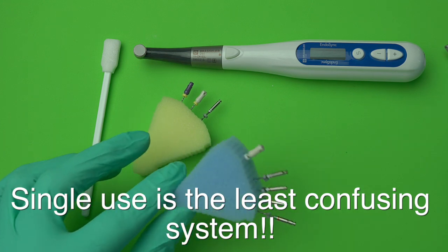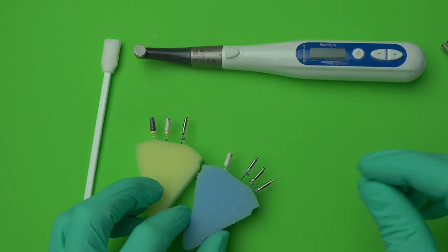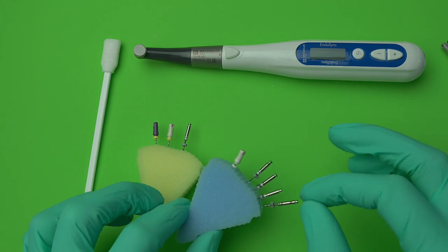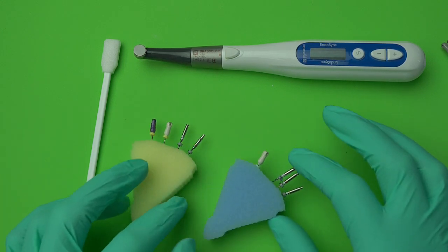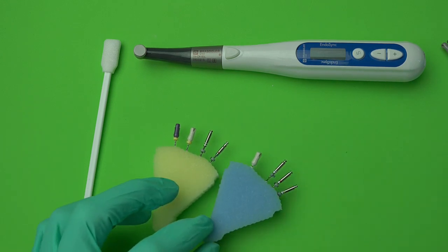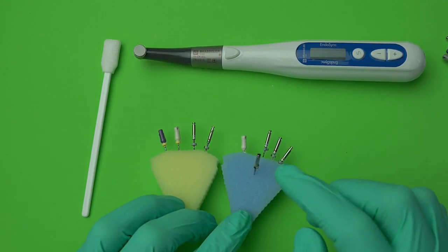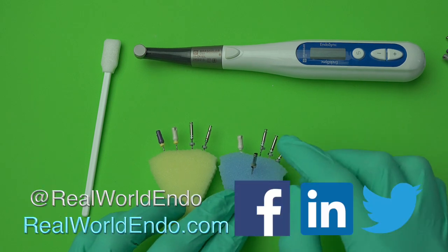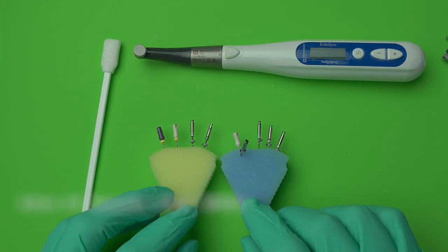For finishing files, we have a separate reservoir where we keep all finishing files to pull from as needed. Finishing files should also only be used for three canals — on a molar, just toss them out; it's all for safety. Most basic cases are completed with two ESX files, and most advanced cases end up being about four ESX files plus the RFS orifice opener. I hope this was helpful in understanding how I do things clinically.